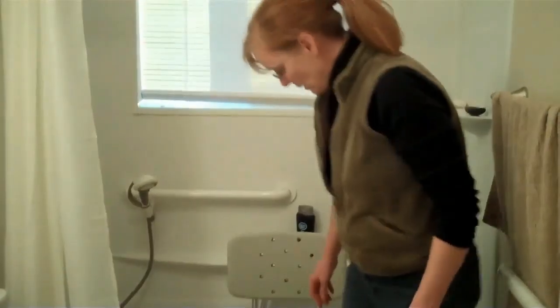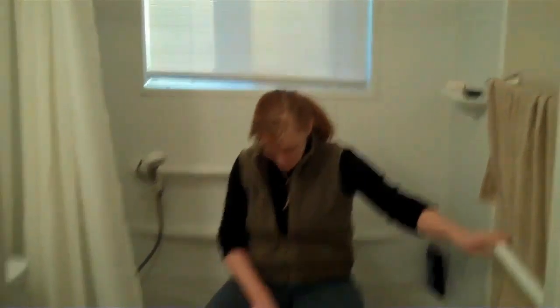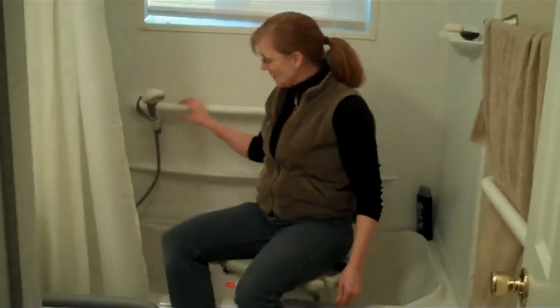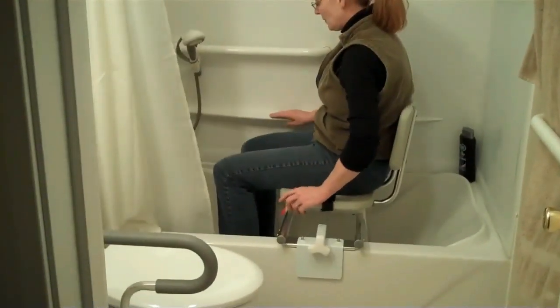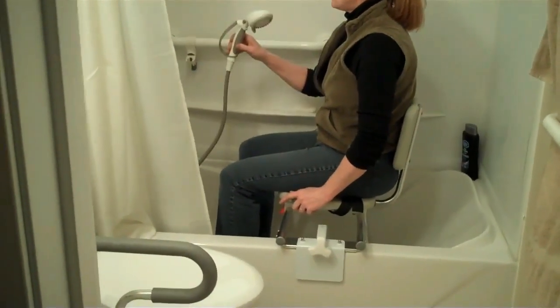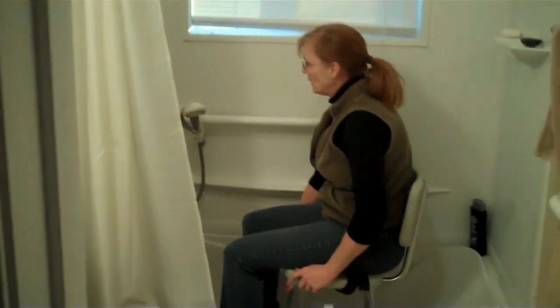This is a very small bathroom for one of our clients — we needed to conserve as much space as possible. He also has use of only one side of his body, so we introduced him to a clamp-on sliding tub transfer bench. He's got plenty of room in front of the toilet, no trip hazards, and he can maneuver in and out.